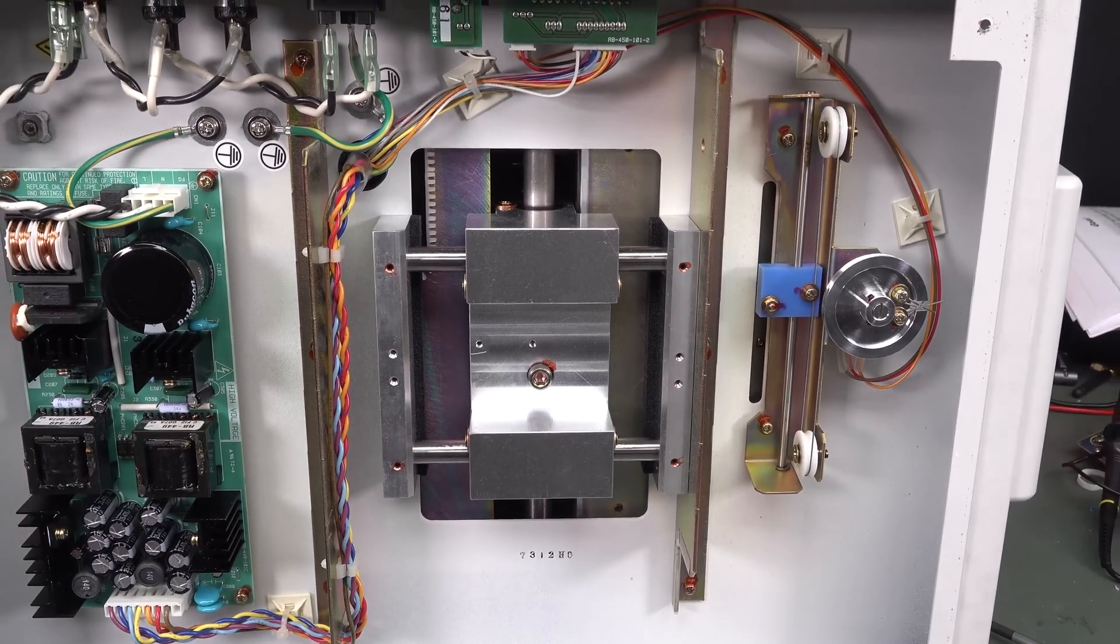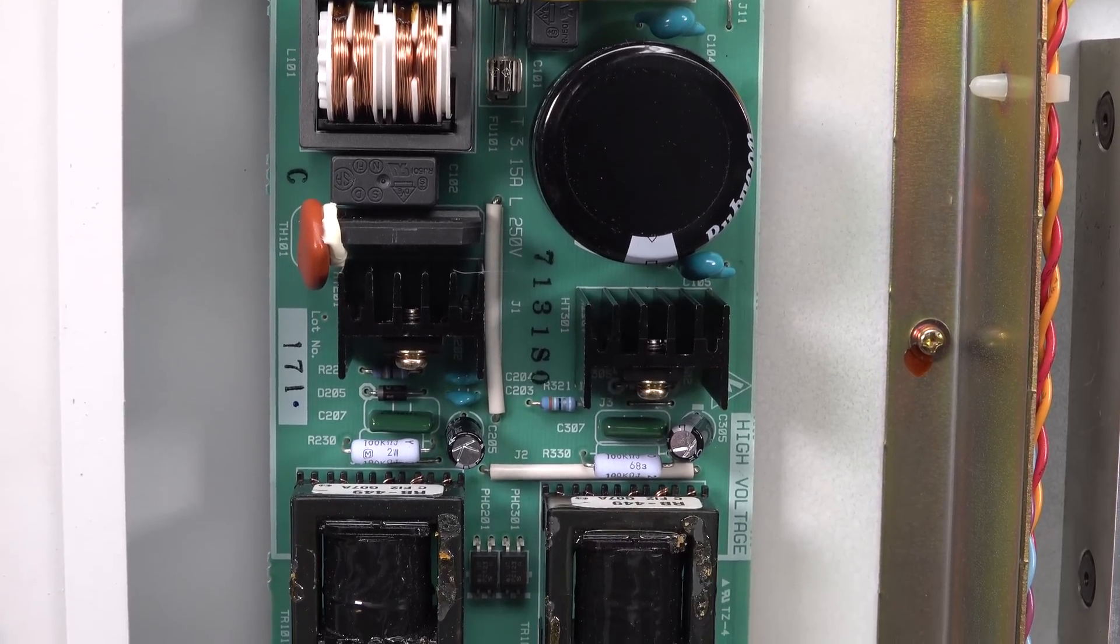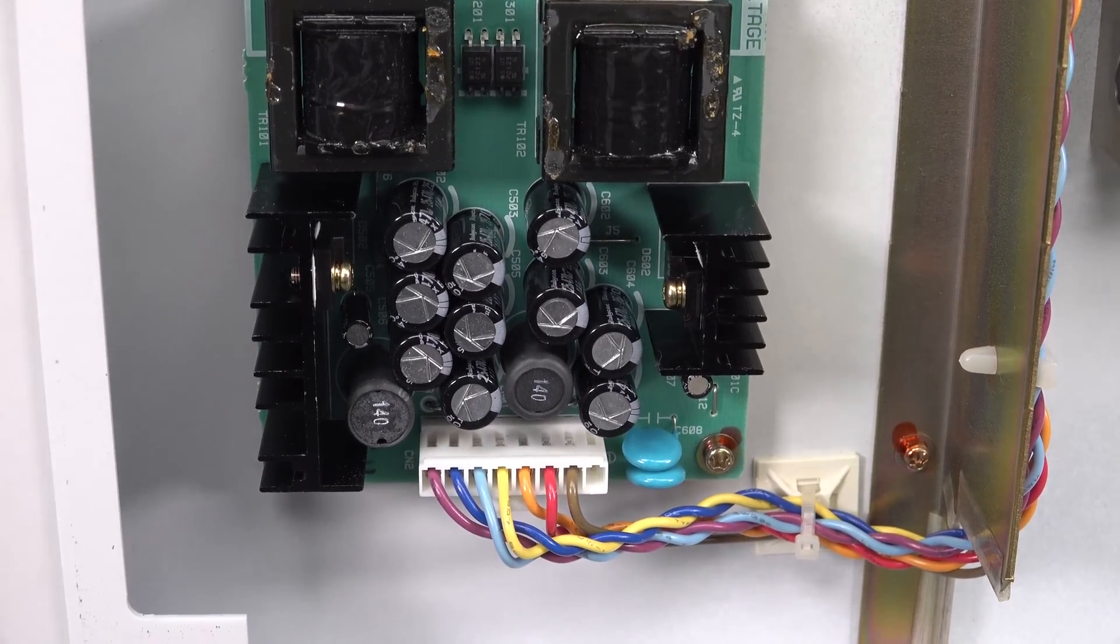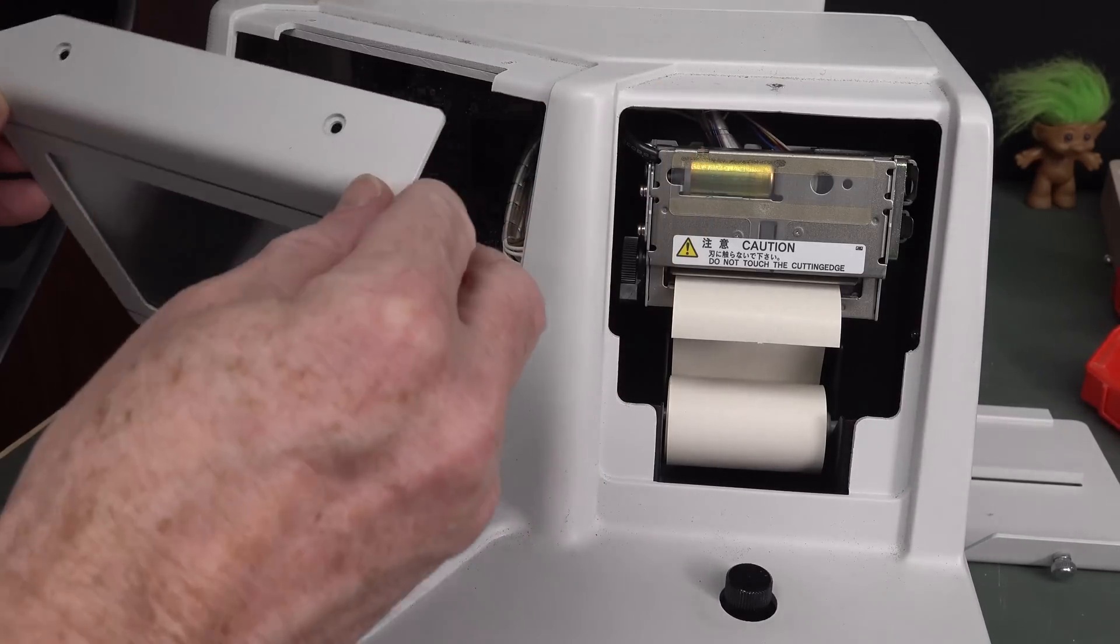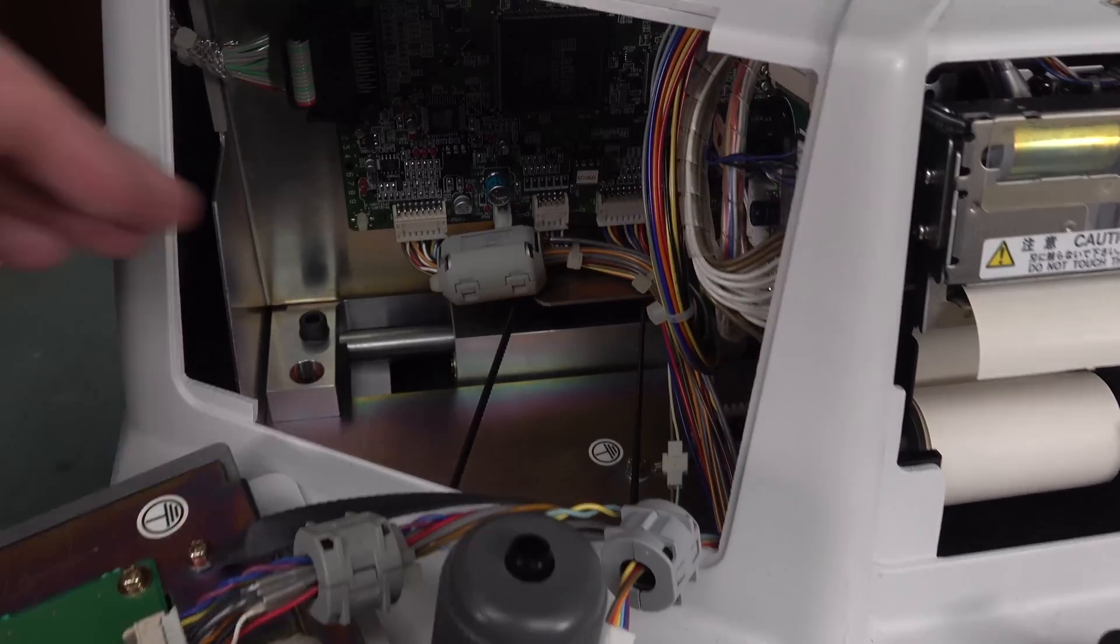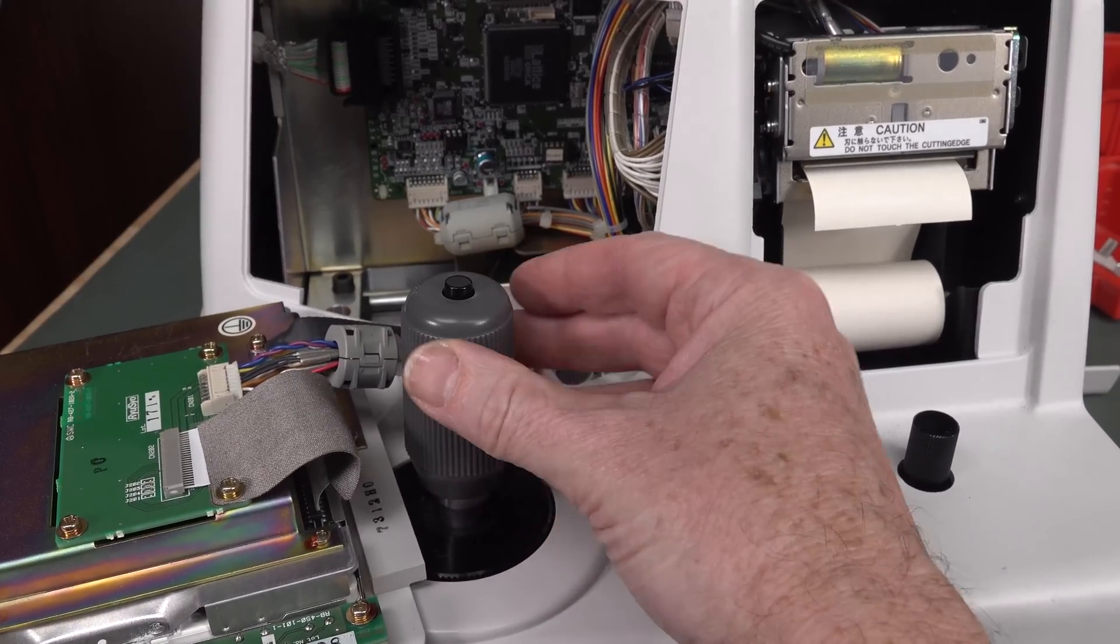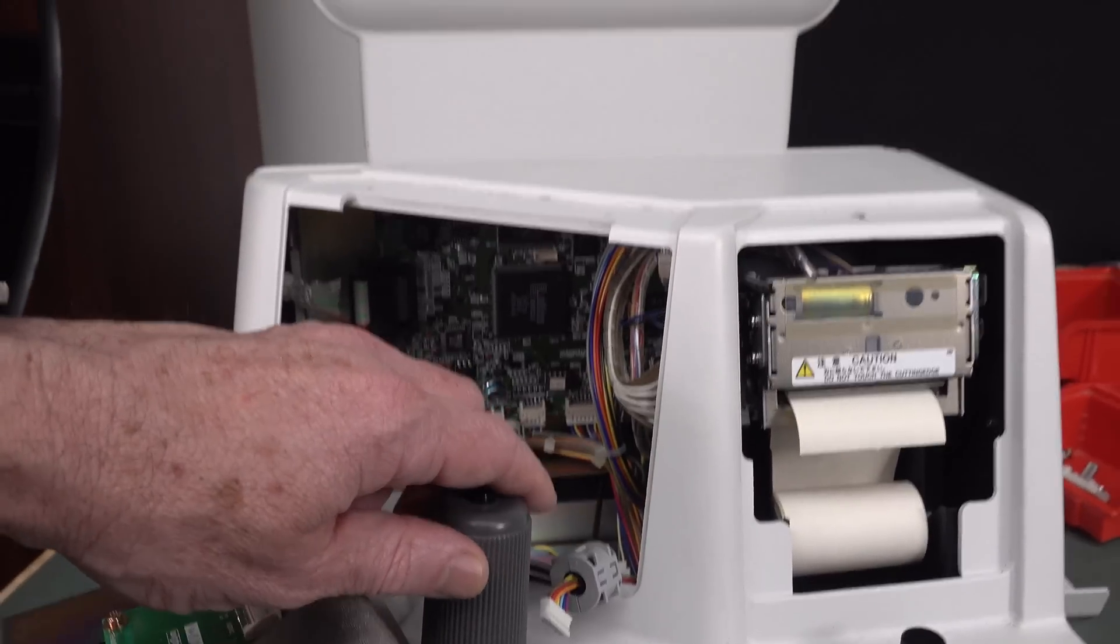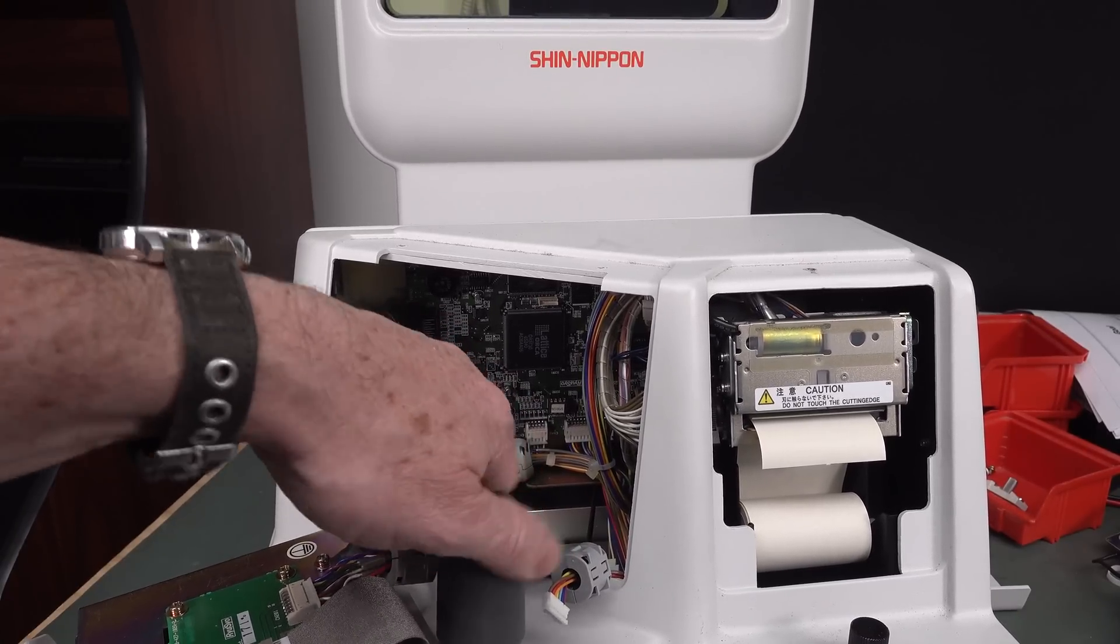Anyway, check out all the wiring. And our mains power supply over here is a bobby-dazzler for you power supply aficionados. But obviously, we're not here for the power supply, are we? They're Rubicon jobbies. That's our printer interface and our processor is just going to lift off. No, that's just the screen. The processor board is in the back there. I see a lattice jobby. Aha, look at this. There's a belt down in here connecting to the joystick. It was actually done up so tight that I didn't know this actually rotated. It's raising the height. That just raises that up and down.